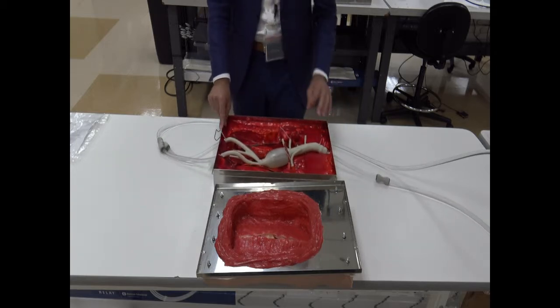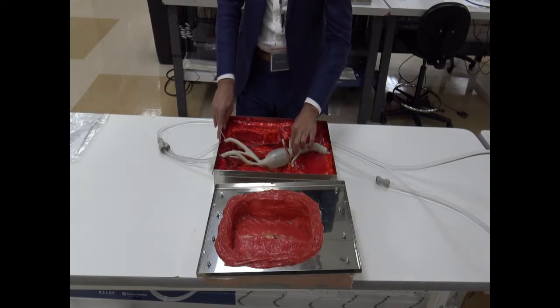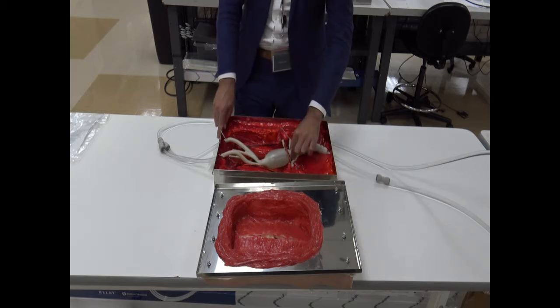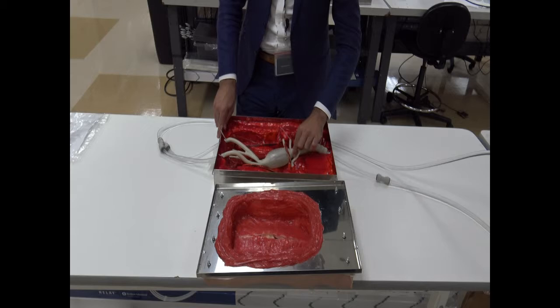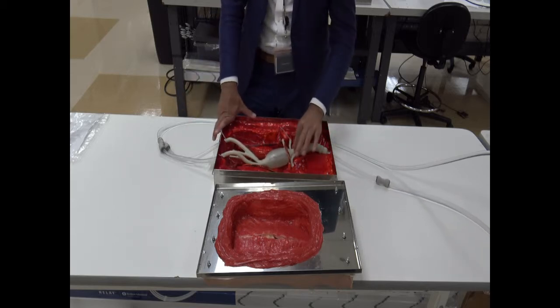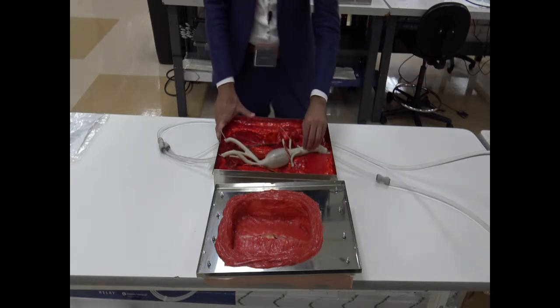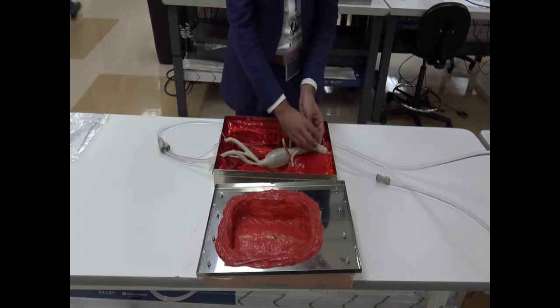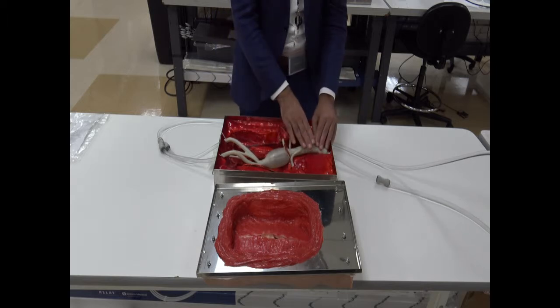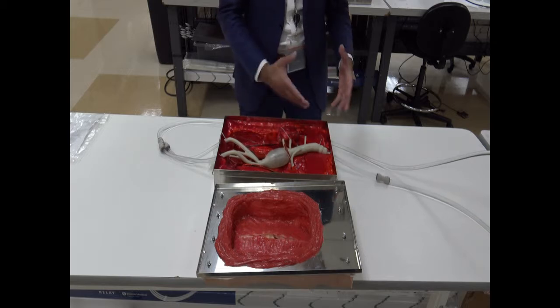Very important aspect of the execution of the simulation is that once the fellow or resident or the trainee that you are running the simulator for clamps the aorta with one of the surgical instruments, it is very important that you switch off your pump, because if we keep pumping, the pressure that we are going to be placing into the neck is so high that the silicone model cannot take it, and it's going to burst.